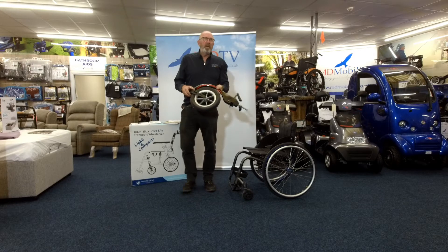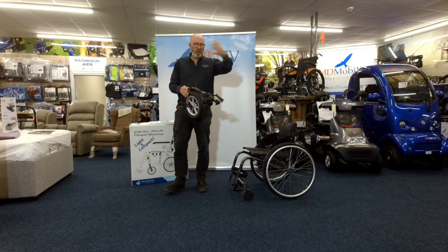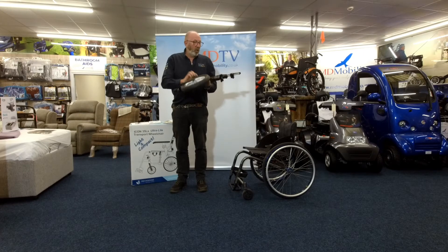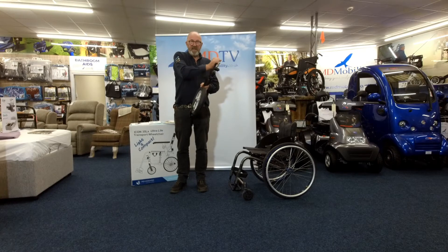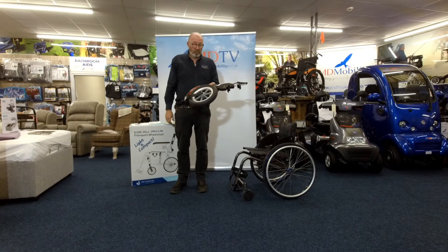Now they are going to be doing a version of this which actually has the frame on so that it will go onto the front of a normal chair where you've got your normal caster wheels and swing-away leg rests — that's coming out anytime soon. But so far we've sold one or two of these, they're absolutely superb, dead easy to do. All you do is set your distance in here and it clamps on with one push of a lever.